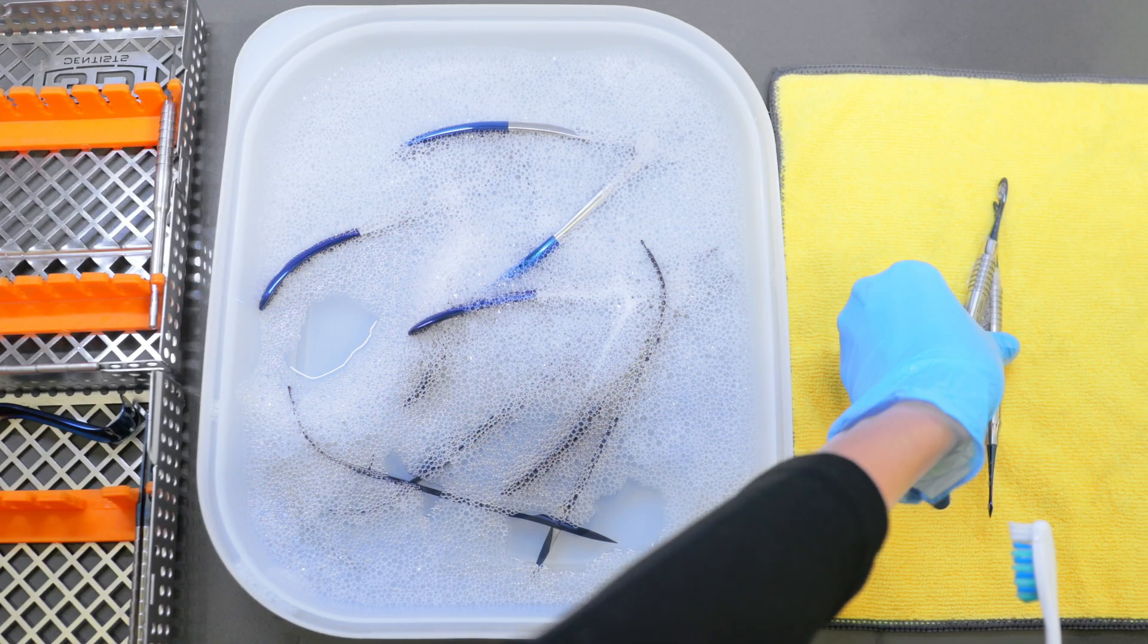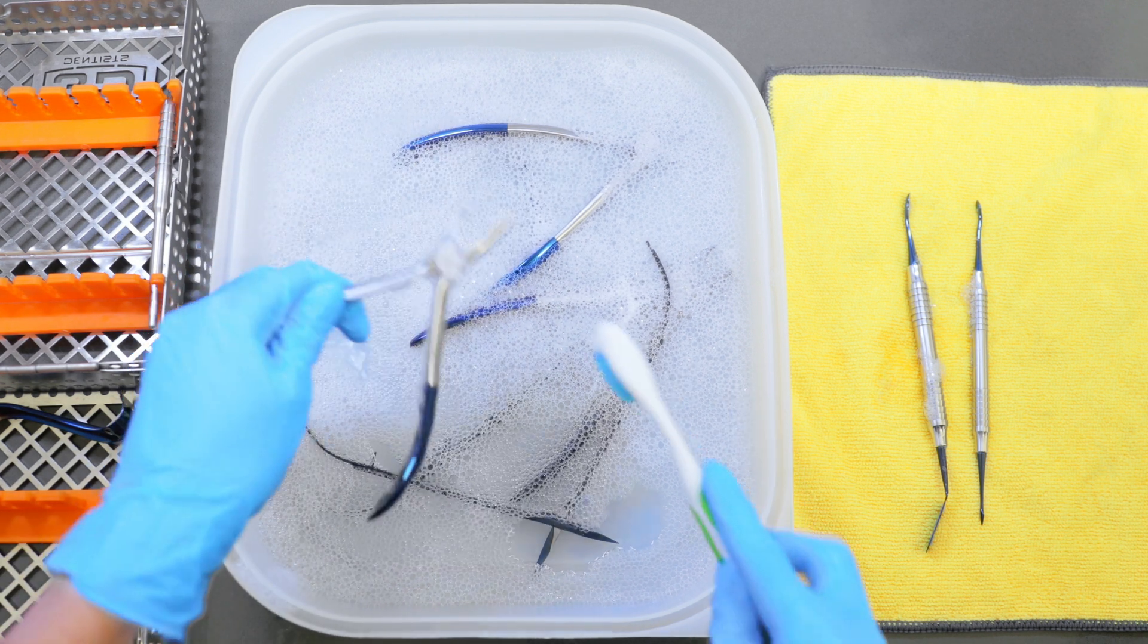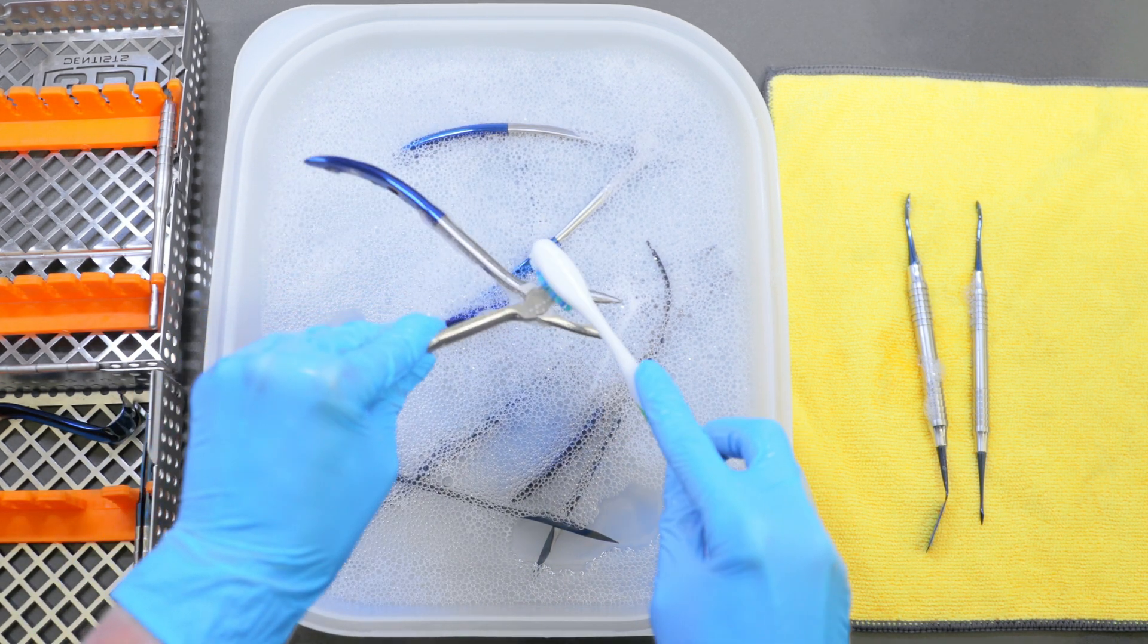PVD-coated instruments should not be left in pre-soak or any chemical solution overnight, as this may cause an adverse reaction with the PVD coating.